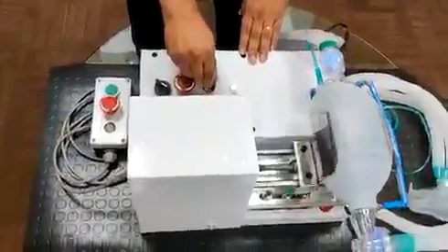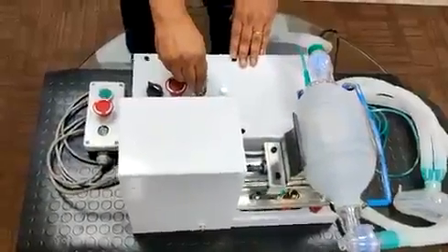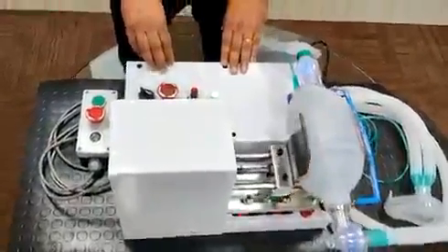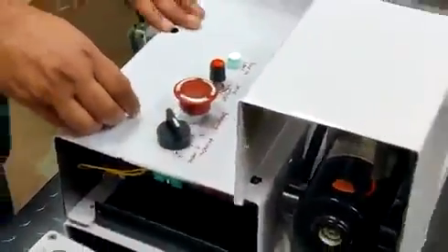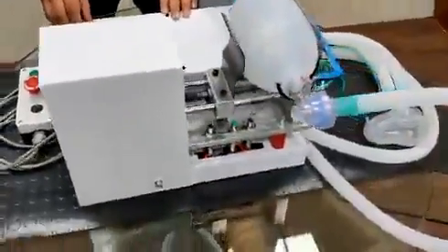You can see as we rotate the knob the speed is getting increased, and we can achieve 0 to 30 breaths per minute. There is also a provision to control the volume of air being pumped. We have provided two settings on the switch, thereby achieving two different volume levels of air going into the patient.